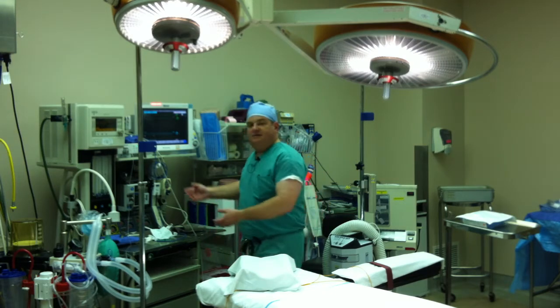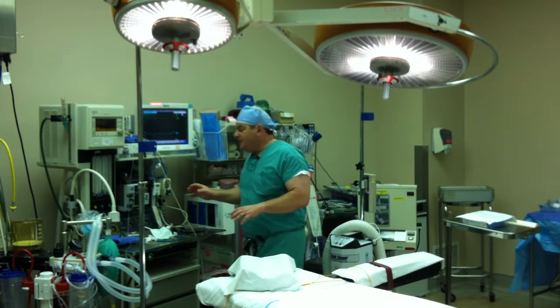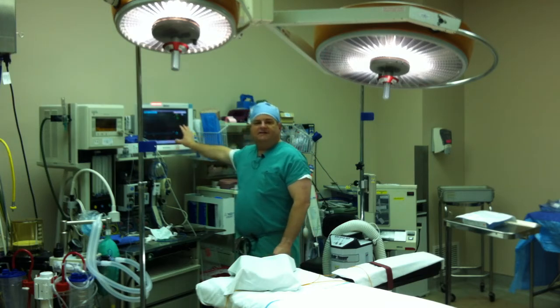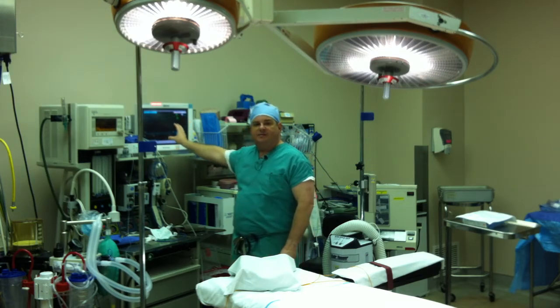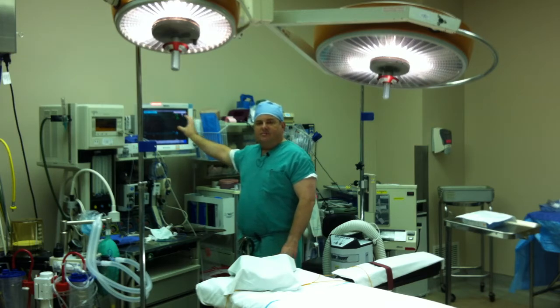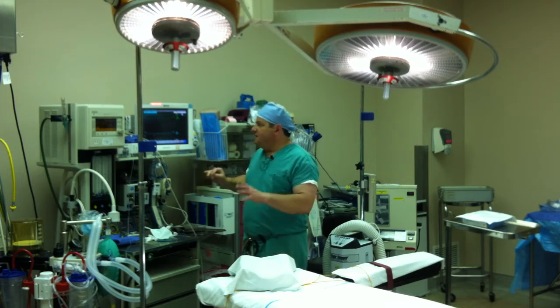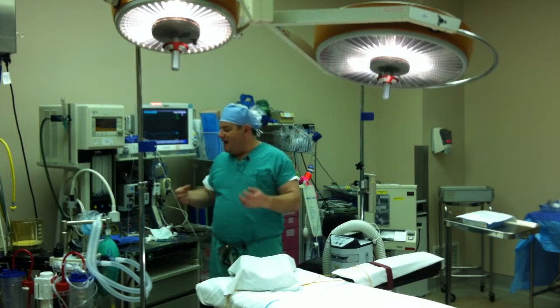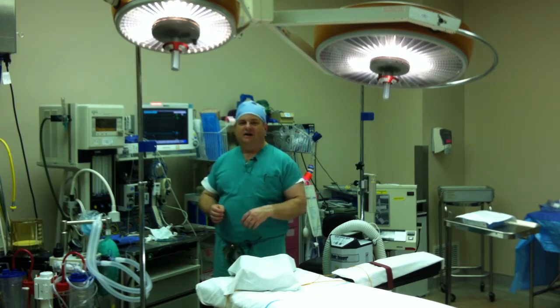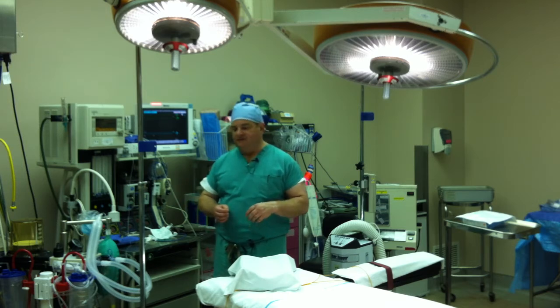Probably the most obvious thing behind me is the anesthesia unit. And this anesthesia unit has a lot of different components. This is a touch screen that allows the anesthesiologist to monitor all kinds of stuff about your physiology. Your heart rate, it has an EKG monitor, your blood pressure, pulse, how much oxygen is in your blood. They get all kinds of information from this. There's other things like CO2 monitors, what we call apnea monitors, all kinds of other things that test different things about your body so the anesthesiologist can make sure that your body is handling the anesthesia safely.